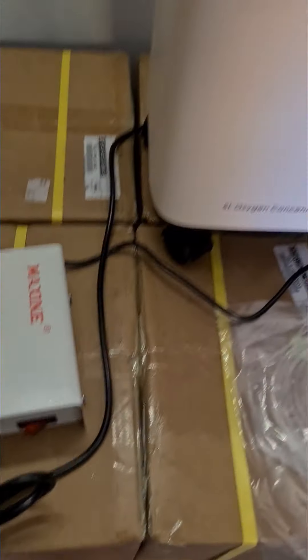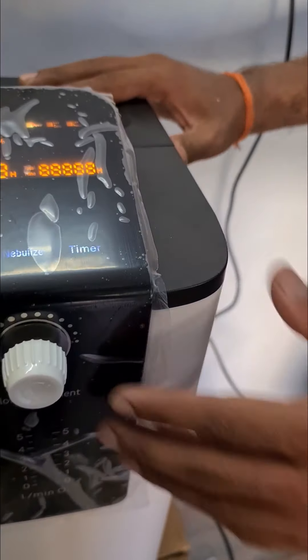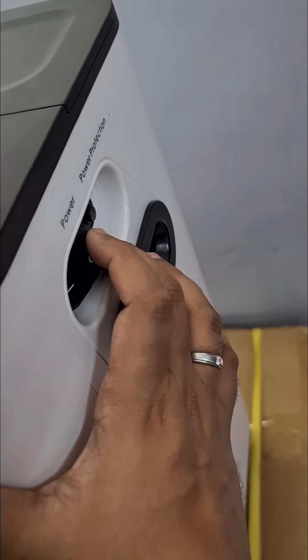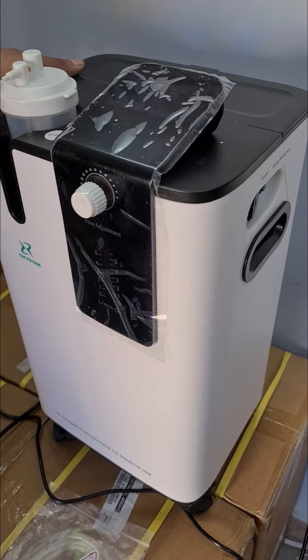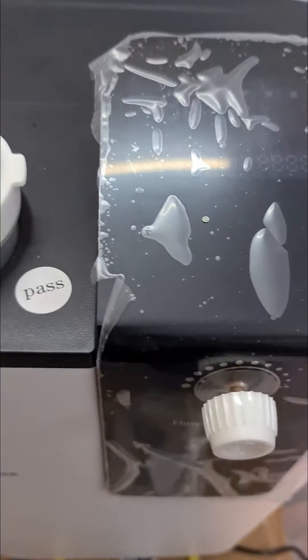Now let's see how he is going to switch it on. After giving the power supply, switch on the transformer and you will see the red color light. Now, the entire equipment is touch screen, so be very careful — even small touches will either switch on or switch off the equipment. You can see the power on/off switch here. Now let me switch on from the beginning, and let me switch off. Now let's see — off position — just click this and the machine will boot up.